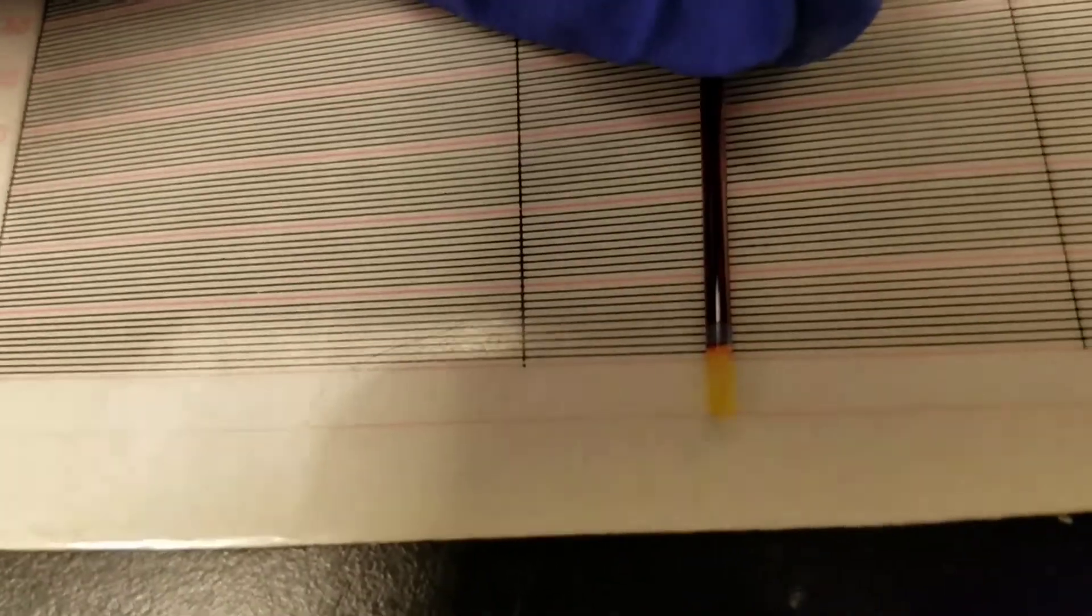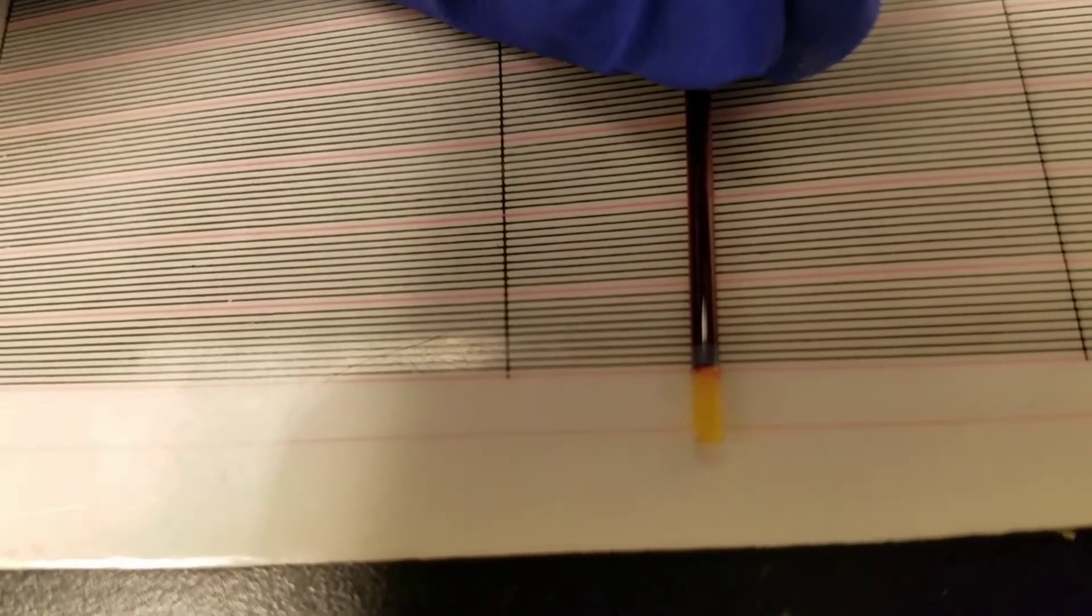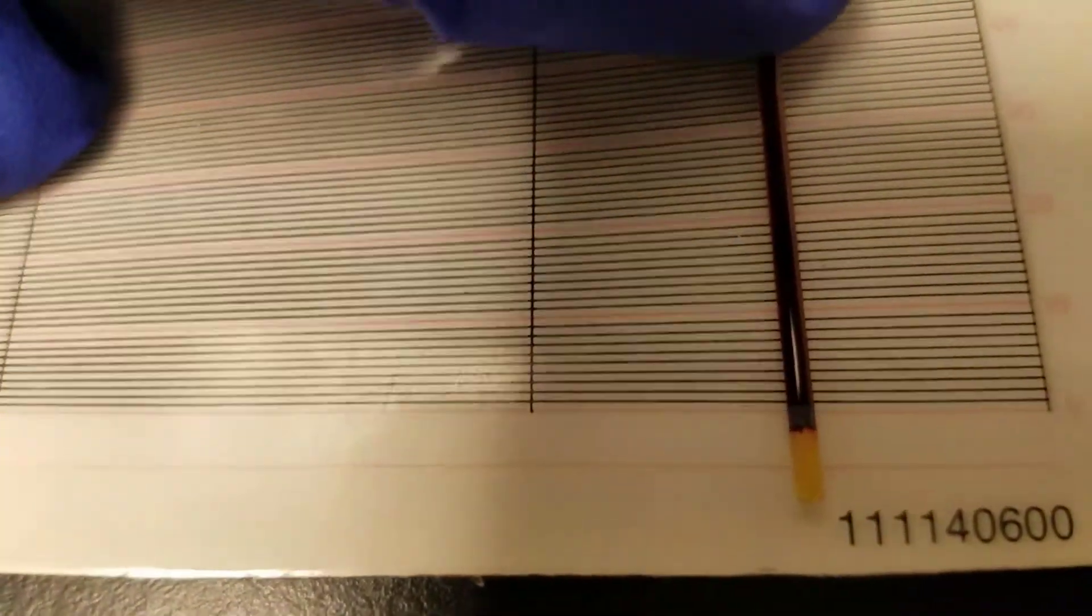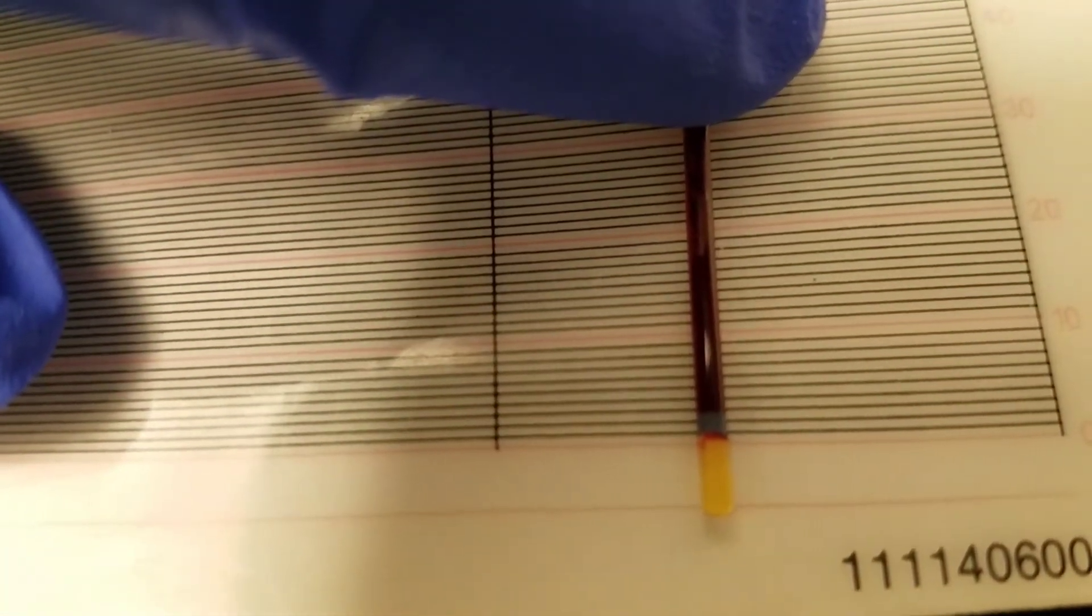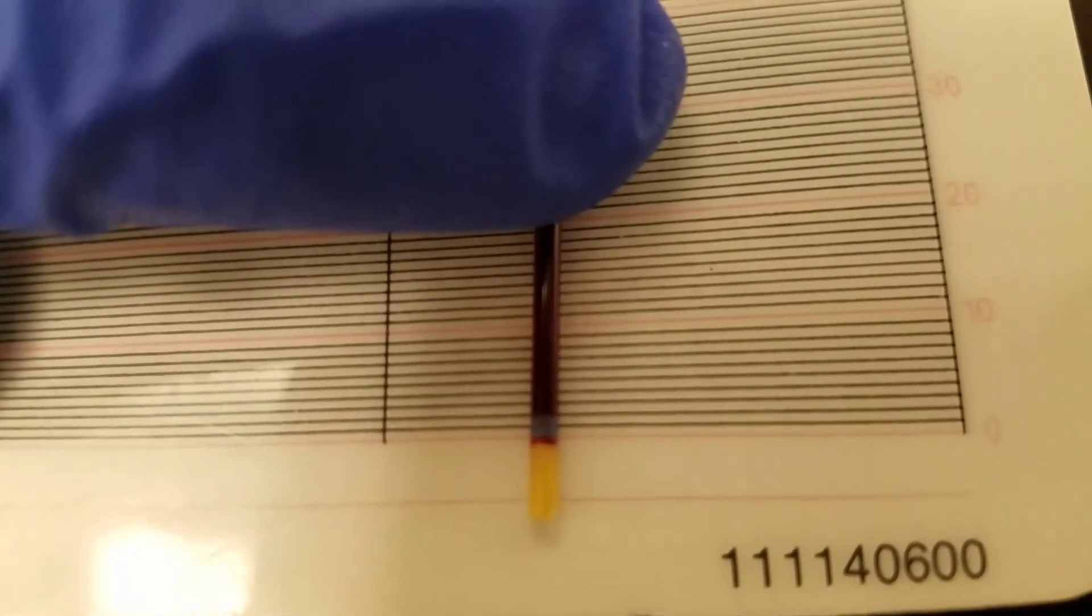We want to have it right about there. Right there, that looks good. And then we have to have that plasma so it goes all the way until it hits the 100% line. We got to have that right on the line and then moved. It's right at the 100% line. Right there. So then we can read. Let's make sure everything's lined up still. There we go. So then we want to read that line. It's right at 41 to 44.